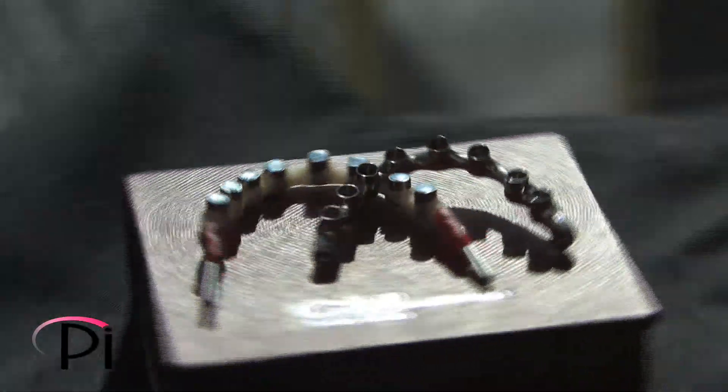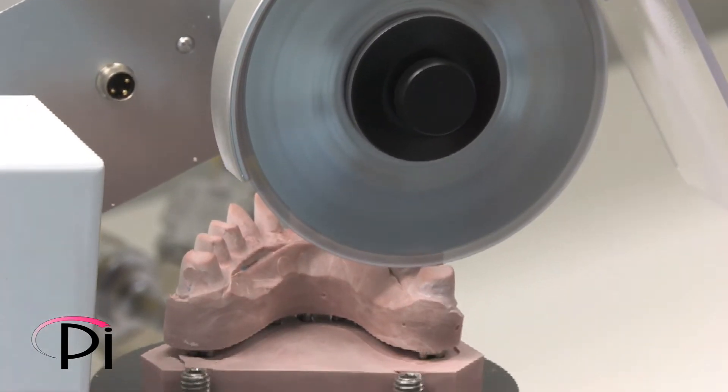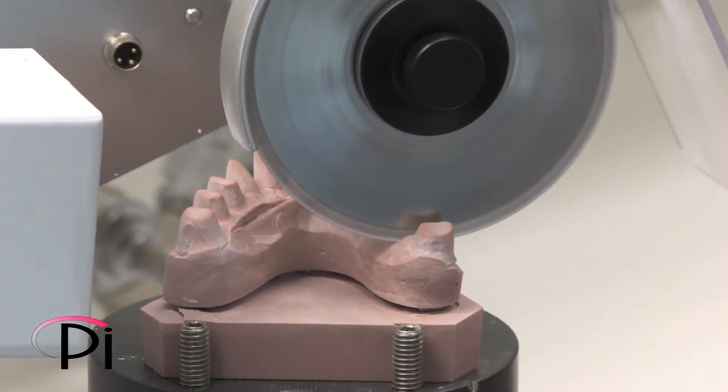The frameworks are then refined, the teeth are handcrafted one by one by an experienced dental ceramist, and then cemented to the framework.